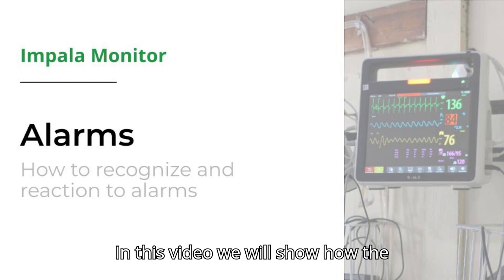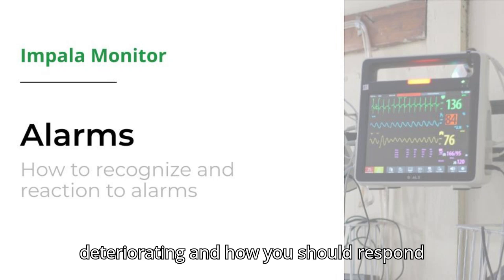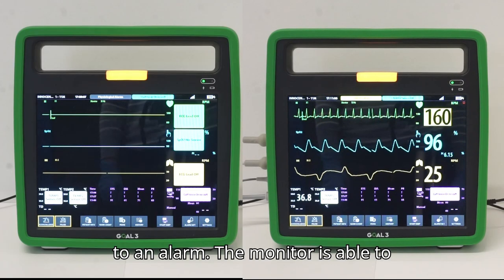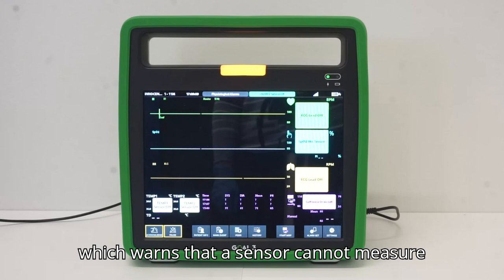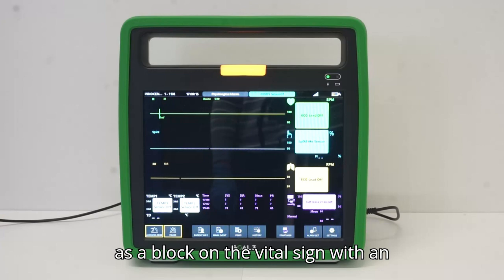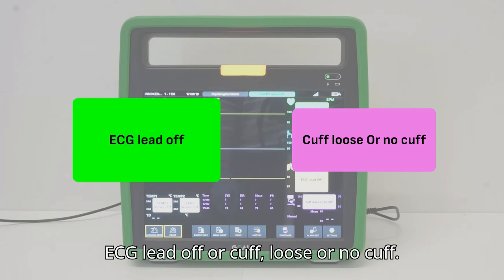In this video, we will show how the monitor alarms you when vital signs are deteriorating and how you should respond to an alarm. The monitor is able to provide two types of alarms. The first type are the technical alarms, which warns that a sensor cannot measure a vital sign. These alarms are shown as a block on the vital sign with an explanation of the alarm. For example, ECG lead off or cuff loose or no cuff.